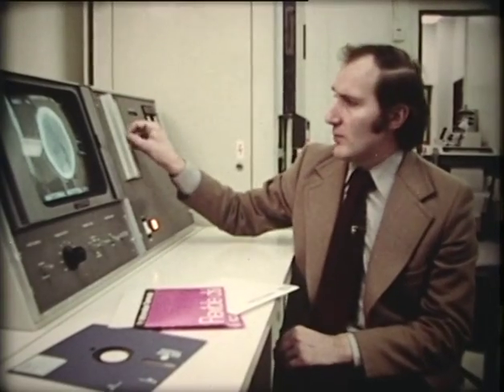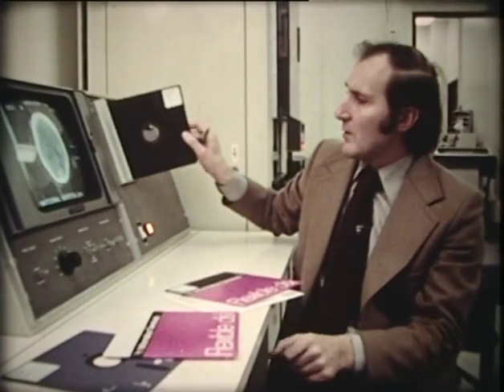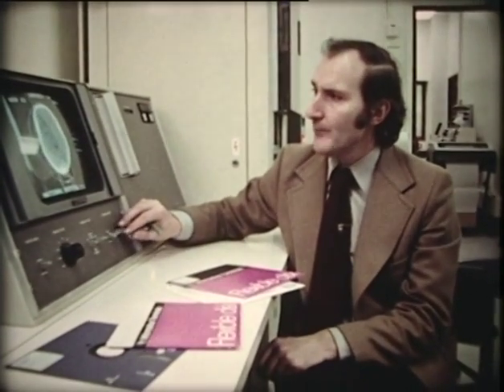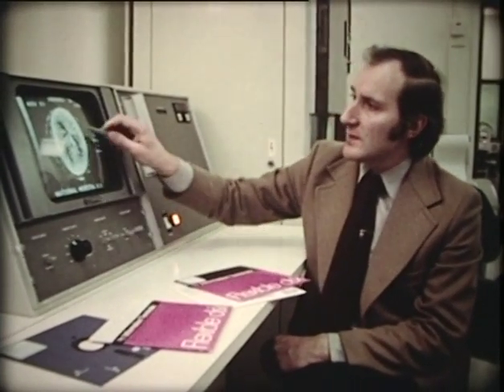The third example I've got here is a boy who was shot by his brother with an air gun. The bullet entered the skull and passed more or less to the middle. Here is the point of entry of the bullet through the bone of the temporal region, and the track we see on the next cut. Here we can see the track through the brain, showing us exactly where it passed. We can see on these pictures that there is a star effect, lines radiating from the position of the bullet.